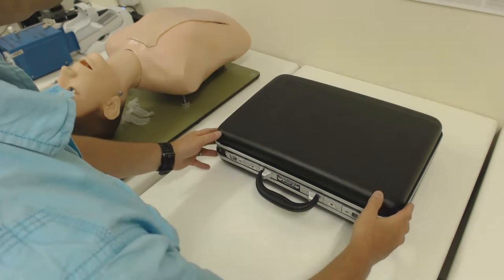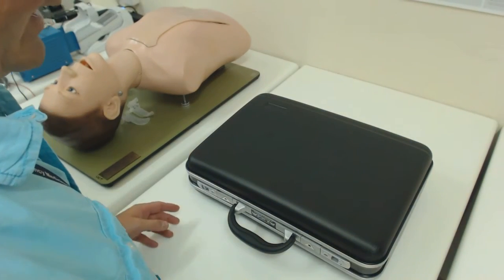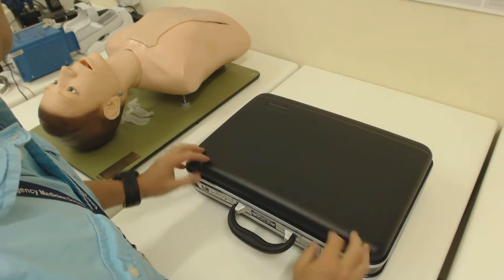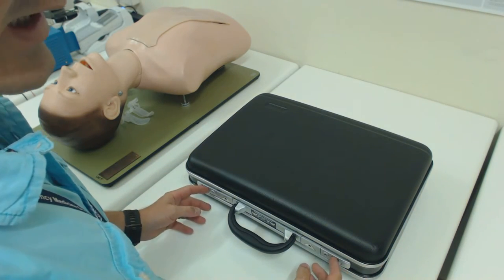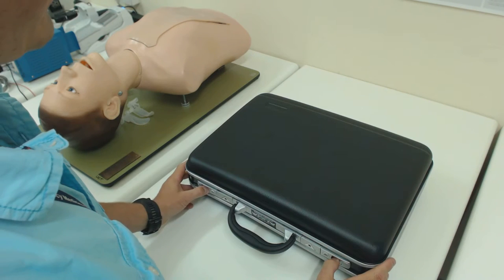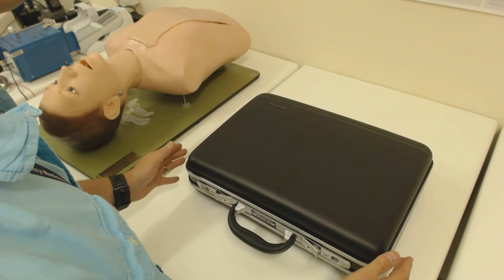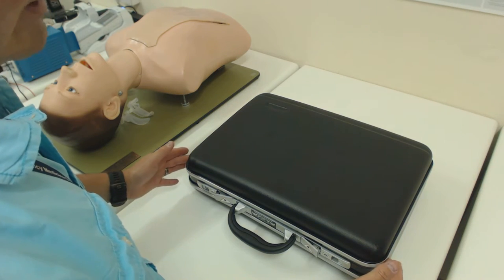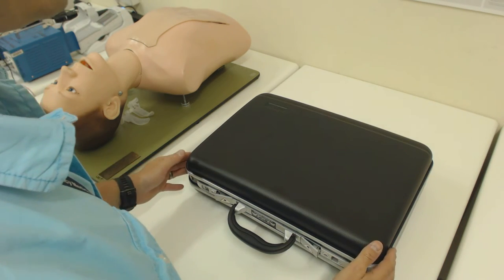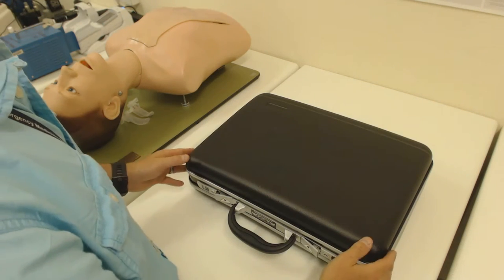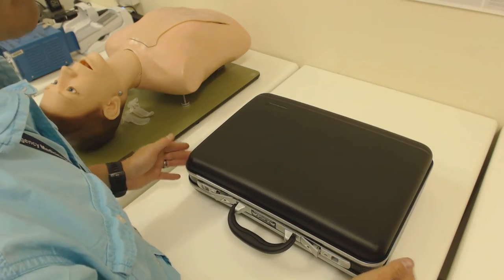Hi folks, we're here in the Airway Skills Lab at UCT and we're going to go over a new piece of kit that we've obtained which is a highly portable intubating video endoscope. This might be a useful video to review if you haven't come across this kit yet or if you are working with video endoscopes and want to review or refresh your knowledge of how everything fits together.